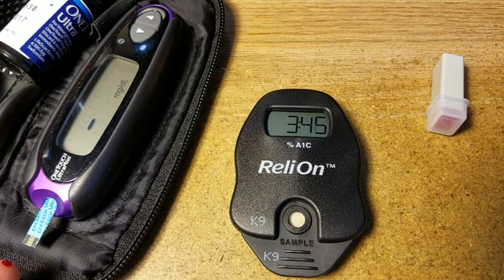While we wait, we're going to take a blood glucose test. There we go — we've got a glucose test and this one is a lot faster. I can see it's 120 right now. So that's a little bit high — that's high for me anyway. 120.